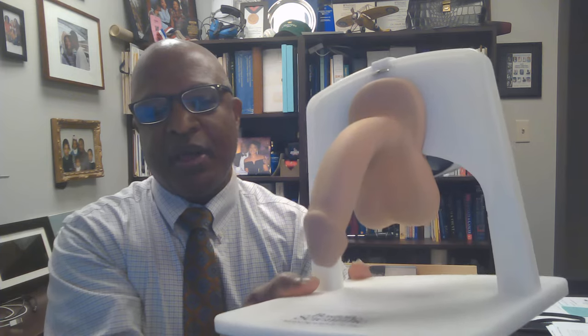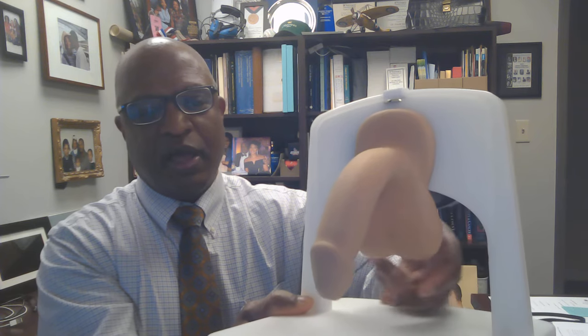I had a gentleman today who said you take the testicles out first — no man is going to let you take his testicles out. How easy is it to operate this thing? It's pretty easy. You just grab the pump between your fingers, and as you operate the pump, you will see that the implant will inflate.